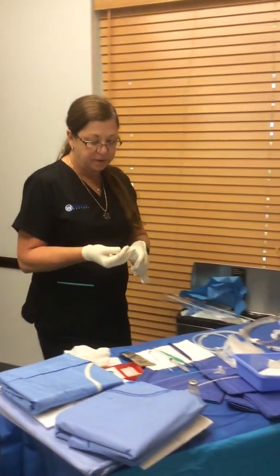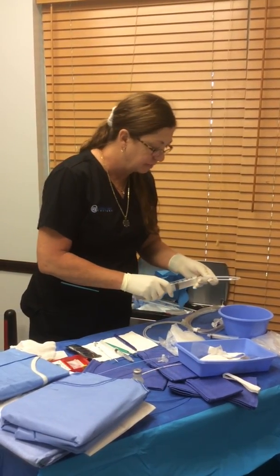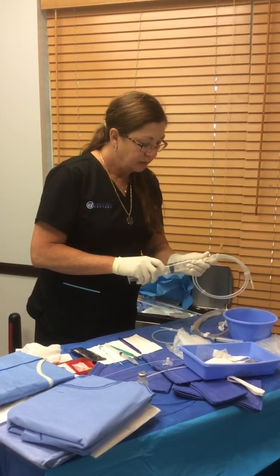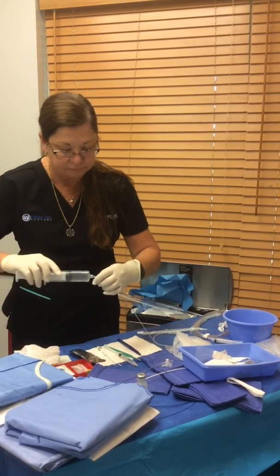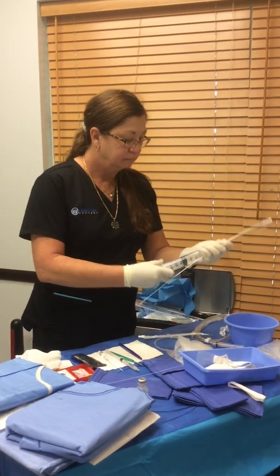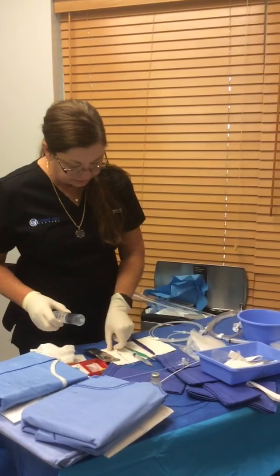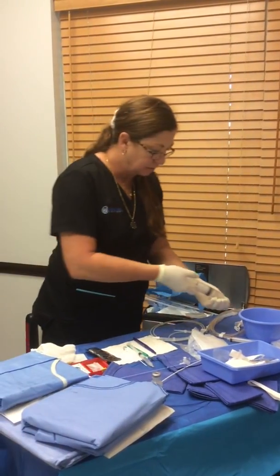30 to 40 mLs is all you need. Take the big needle off and start flushing everything. Put it right back where it belongs after you pick it up. Once you get everything flushed, squeeze the syringe full back in there and fill up the syringe for the doctor.